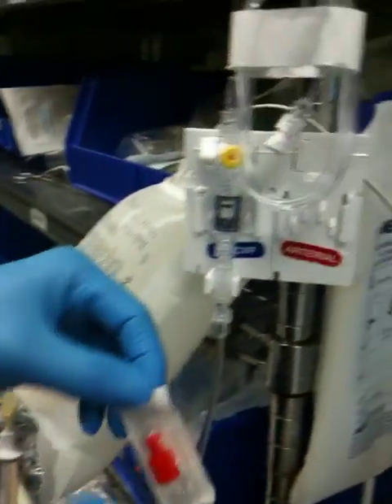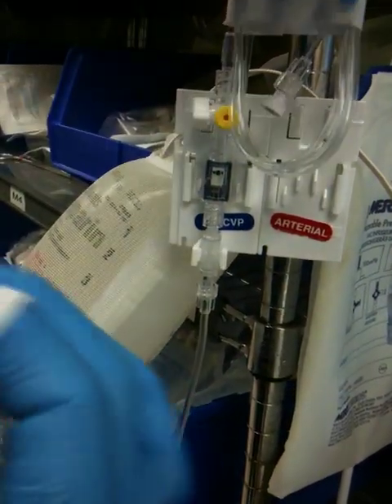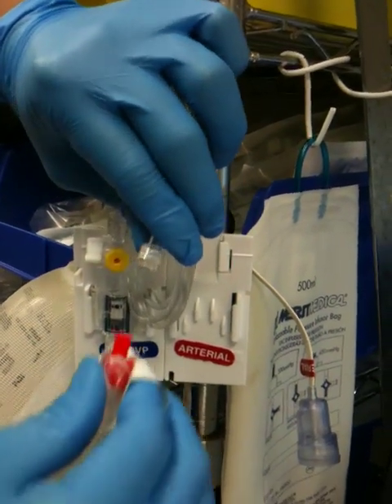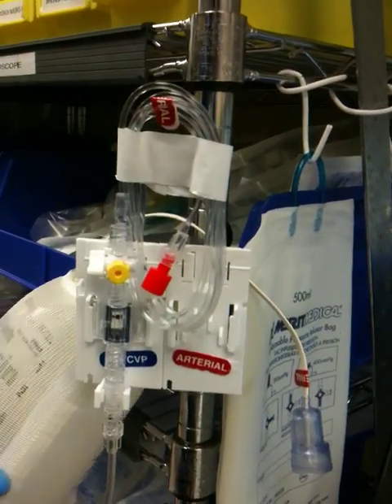Now capping. Get your red cap — you've got to open it up like this, the right way. Watch my hands — I'm going to open it up like this, get rid of that, and then cap like that. That's the way you sterilely cap something. That's the final product.